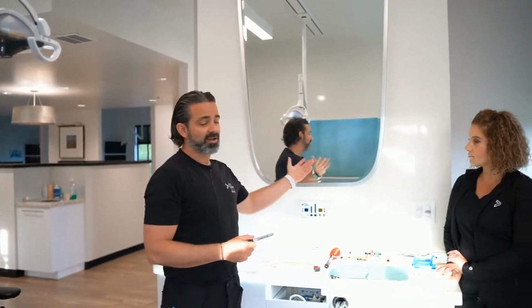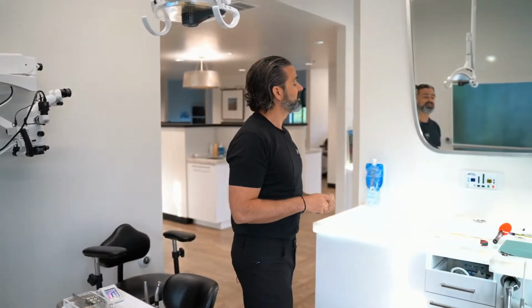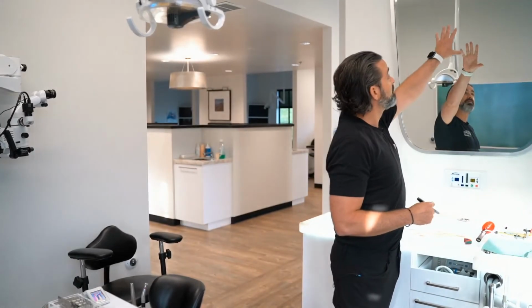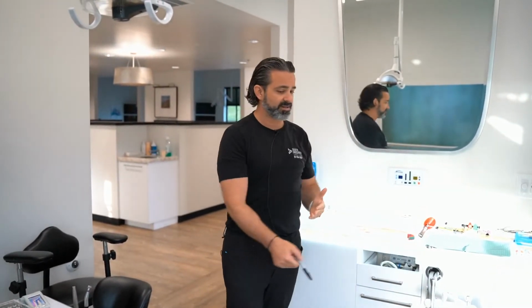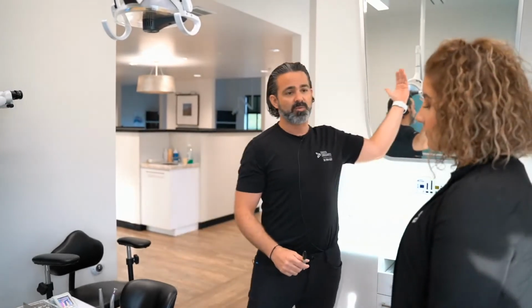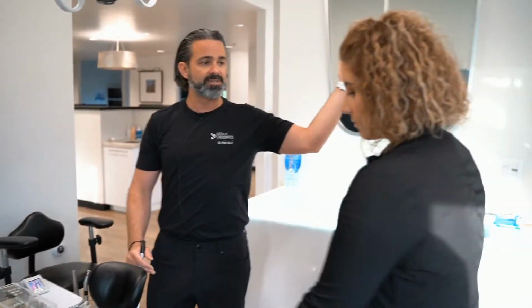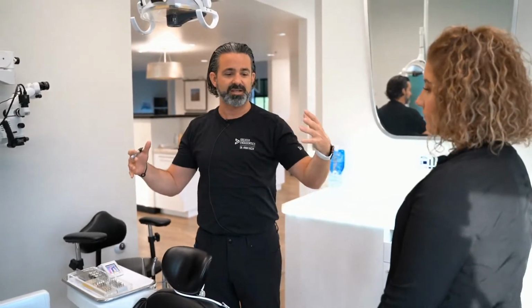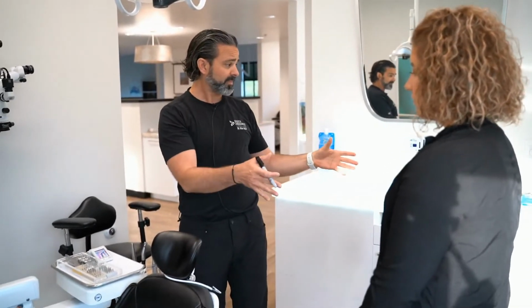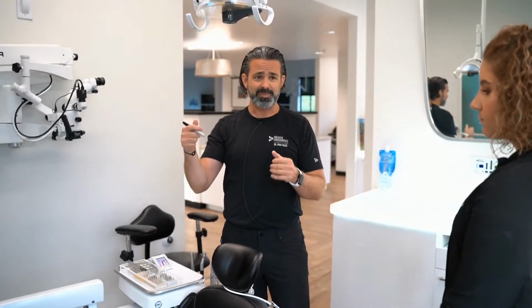Now, the advantage of 12 o'clock is it doesn't matter if you're right or left-handed, and I'll show you what that means in a minute with positioning around the chair. But with 12 o'clock, the problem is when you mount a microscope here, the arm has got to come somewhere. So, Lindsay, do you want to stand right here? If I have a microscope arm come through here and I'm working at this patient's chair, it blocks our view, so it makes you feel locked in. If I'm right-handed and looking this way, it makes sense to have it over on your right shoulder, but then you're blocked in.